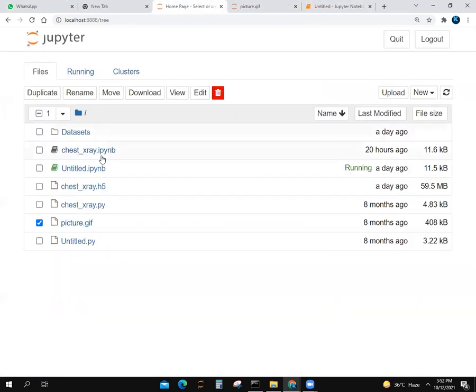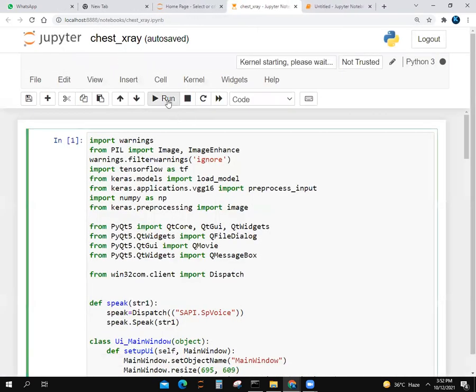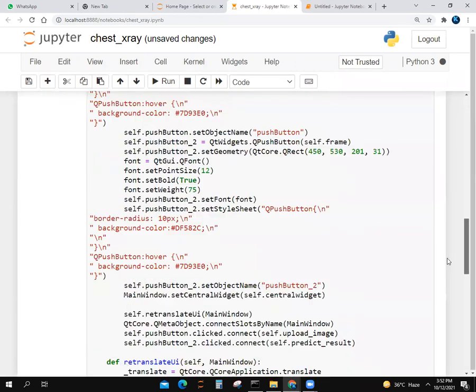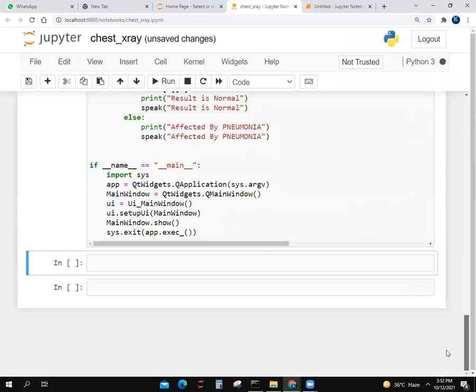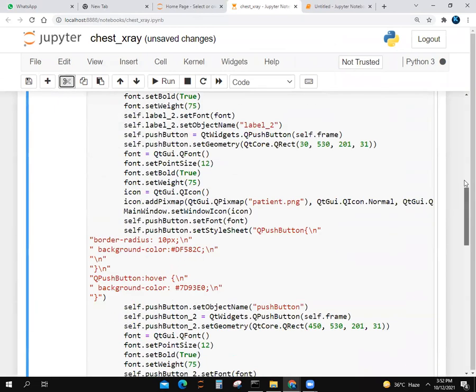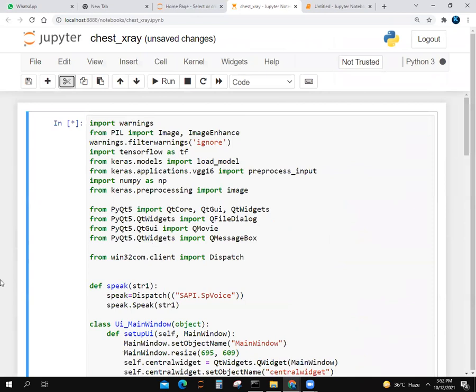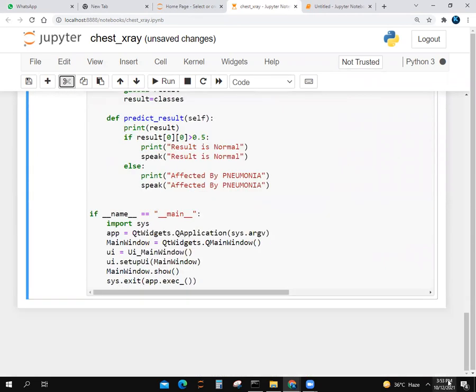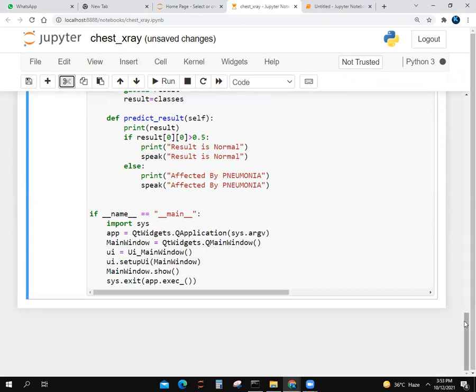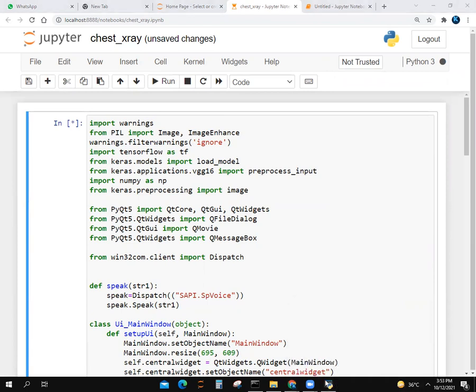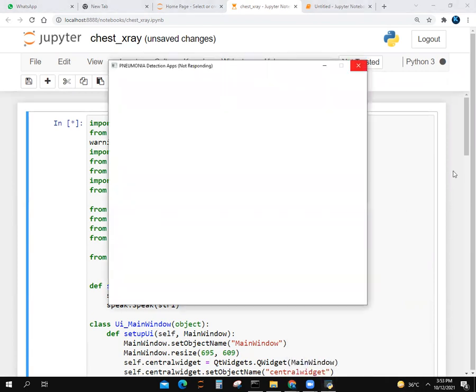First, I'm going to show you how our program will look so you'll have a better idea of what we made. It's running. It will take one to two minutes to run because it's a large program. If the x-ray report is normal, there will be an artificial intelligence voice that says the report is normal. If you have pneumonia, the voice will say you have pneumonia.